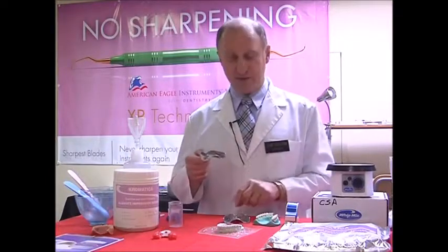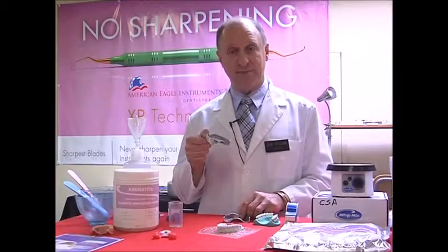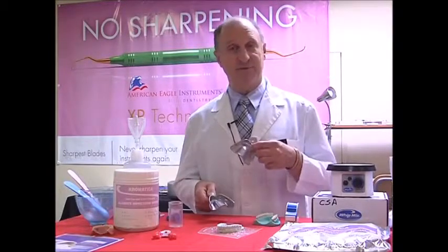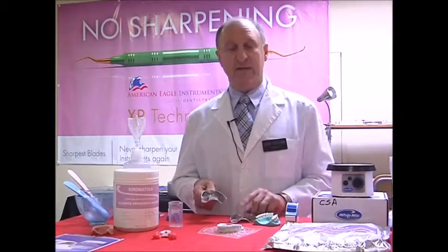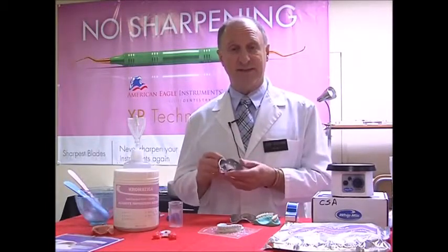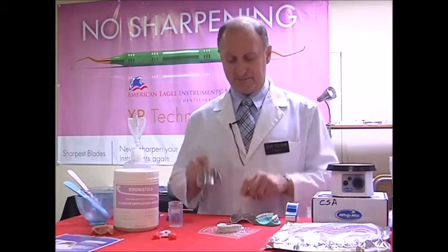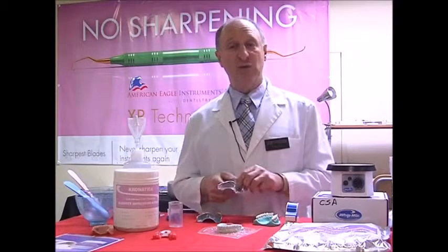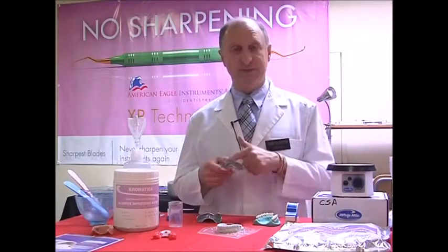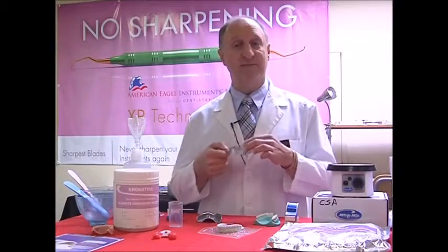So if we compare the two, we get more definition with a solid impression tray versus a perforated impression tray. So with our choice being for a regular dentition, with all the teeth being there, we want to have a muco-compressive impression. The solid tray is our choice. When we have partial or edentulous cases, we should be using our perforated trays because we don't want to compress soft, flabby tissues.